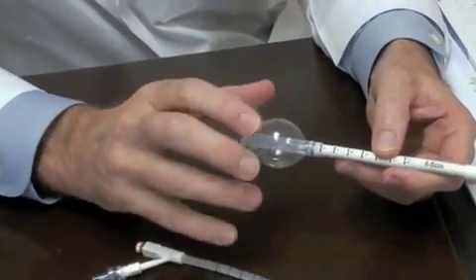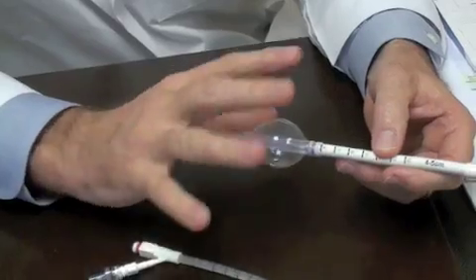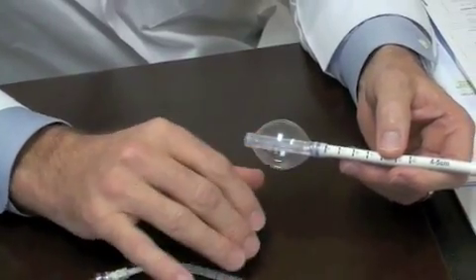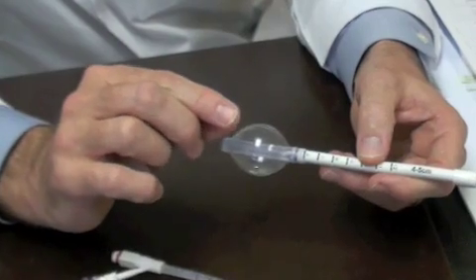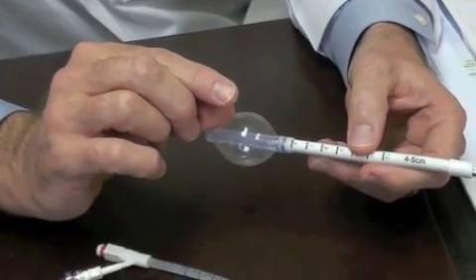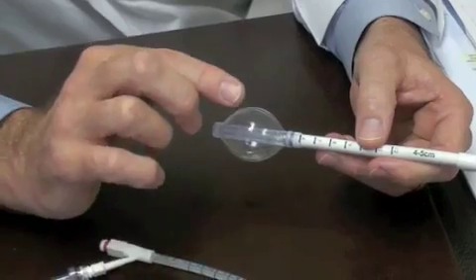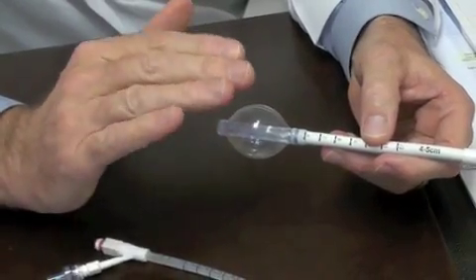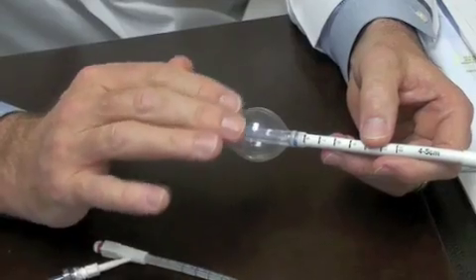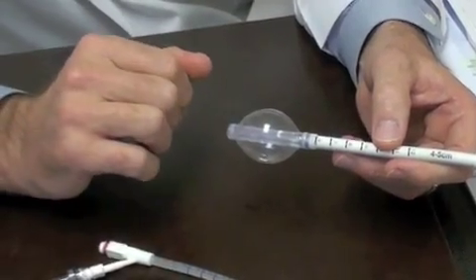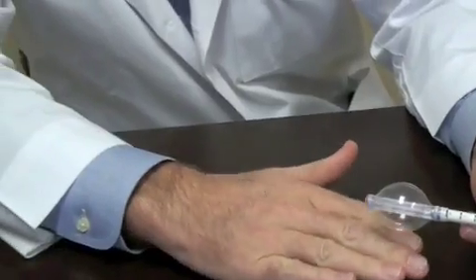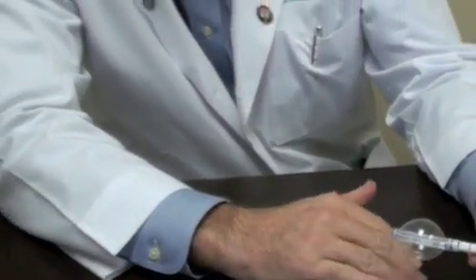You can change the radiation dose to the skin and tissues around the balloon. What that means is that the tissue above the balloon, which is the skin, you can decrease the radiation dose that the skin gets, and you can also apply that to the chest wall on the deep side.